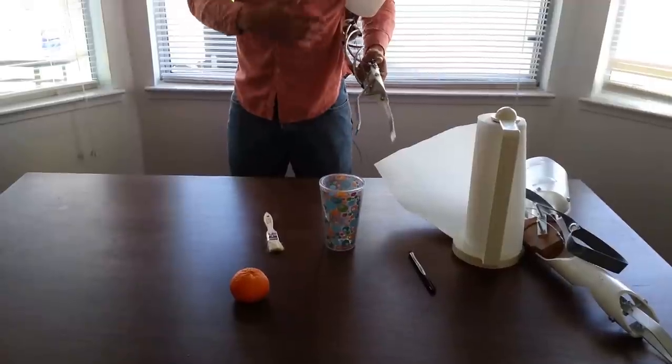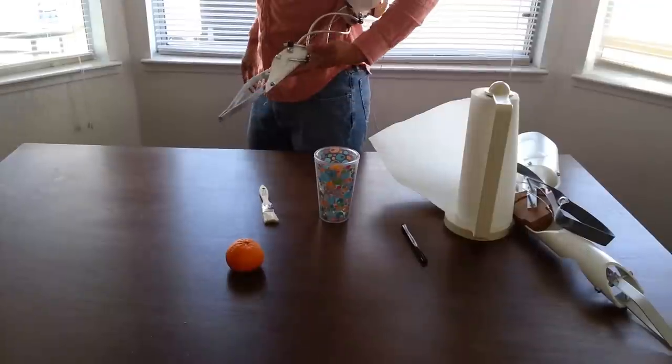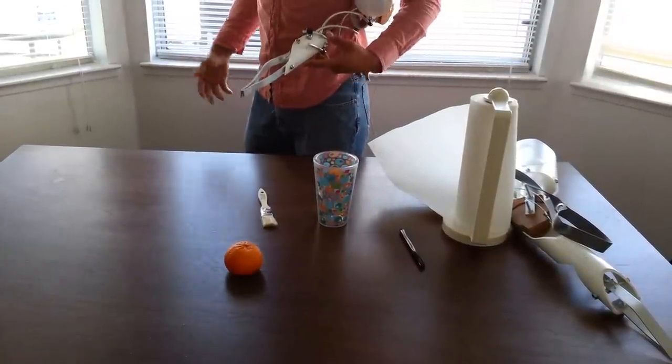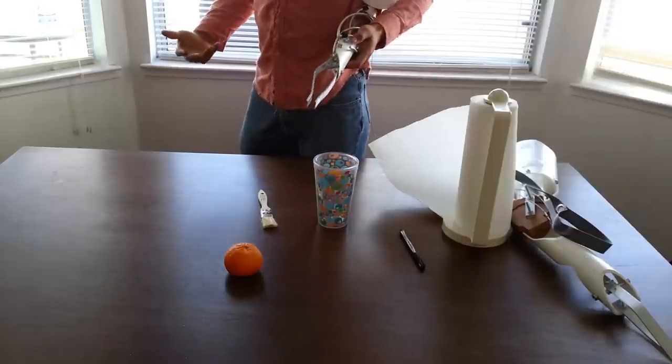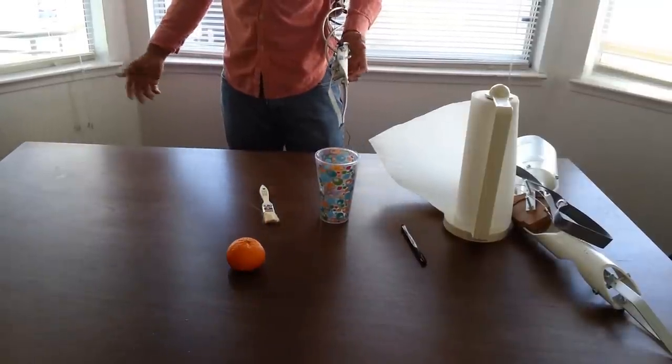So this one is composed of the same material, polyethylene. But the only difference is that instead of having PVC all the way through, it has aluminum tubing, aluminum stock to make it lighter and also give it that rugged strength that it requires. And it also gives it a nice aesthetic look too.